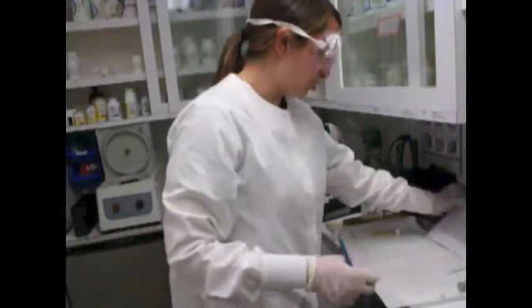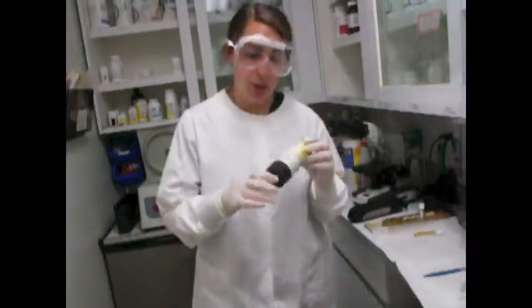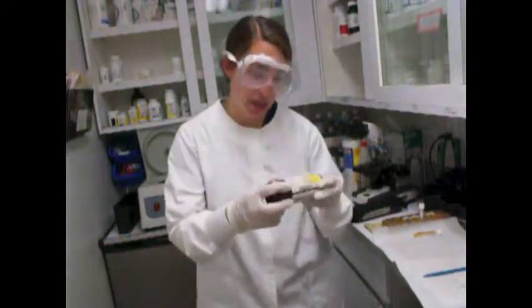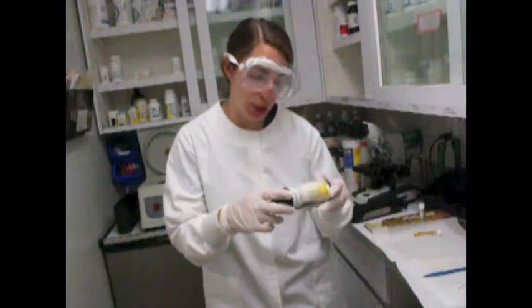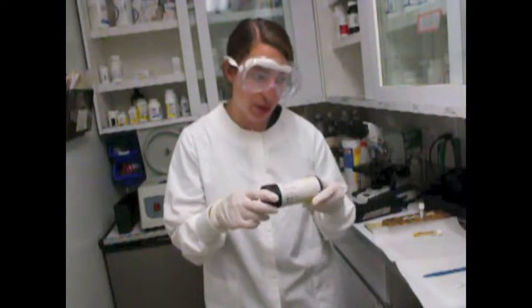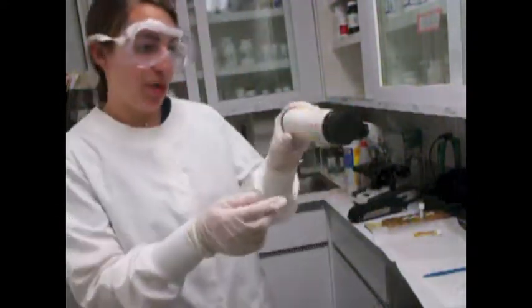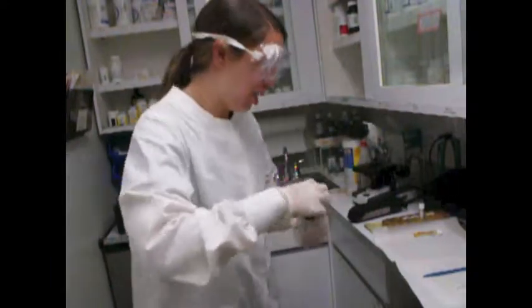Okay, so next what I'm going to do is I'm going to use my dipstick. So dipstick can be used to determine the chemical observations of the urine sample you're testing on. So this would be able to indicate the patient's pH in the urine, glucose, protein, bilirubin, ketones, and if there's any blood in the sample. So this is how you would read it. The chart is actually on the container.